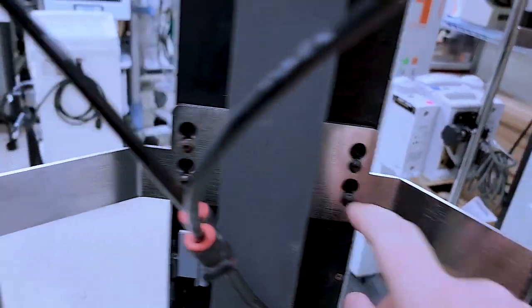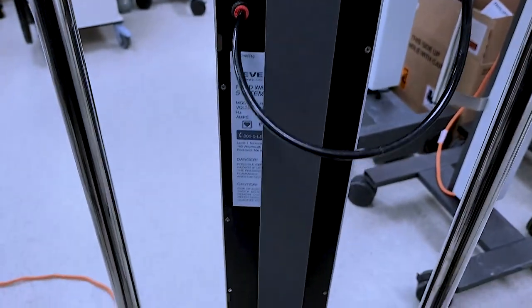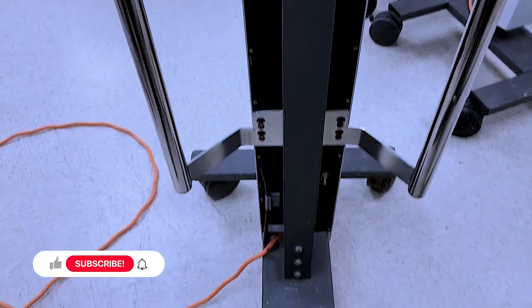You see right here, we have keyholes. So these ones here are 1/8th Allens. I've already loosened them. You don't have to take them out, just loosen them. That's all you need.